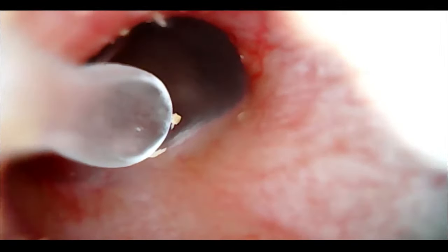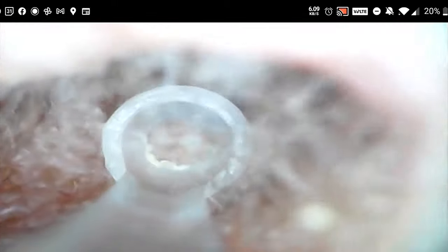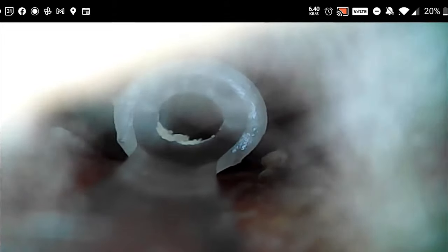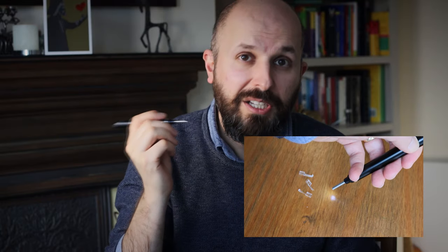When I used the video camera with the paddle attached, the paddle increased the overall diameter of the device and I found it very difficult to insert into my ear. I also found touching the ear canal skin with the paddle very, very painful, and I was worried I might tear the skin of the ear canal, which can lead to infections. When I tried the alternative attachment, I found it almost impossible to insert. I guess if you had a larger ear canal it would be easier, but people with large ear canals generally don't get that much wax. If you are going to use this, use it very slowly and take your time.